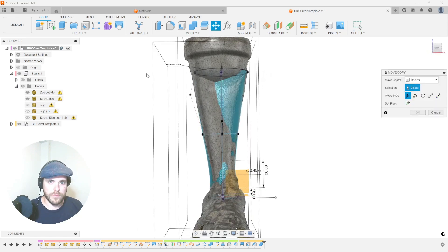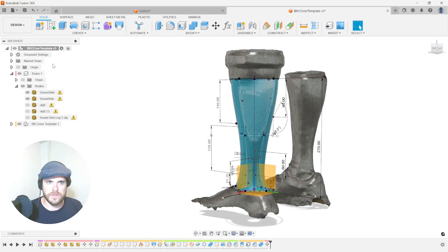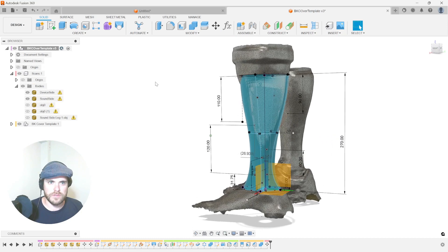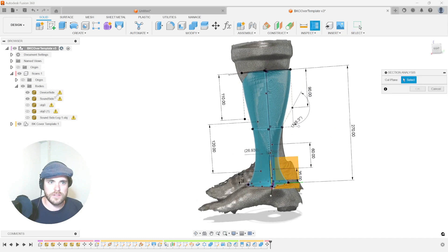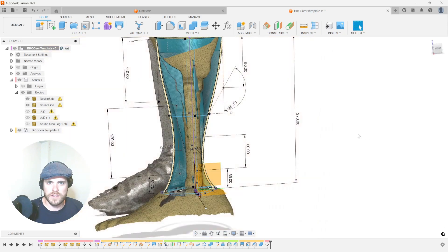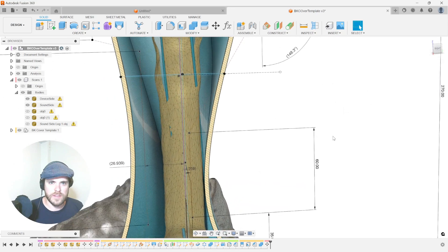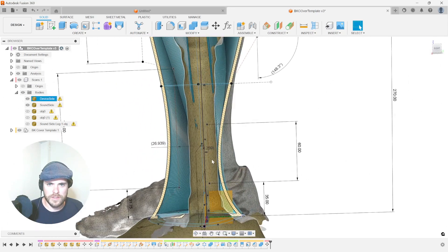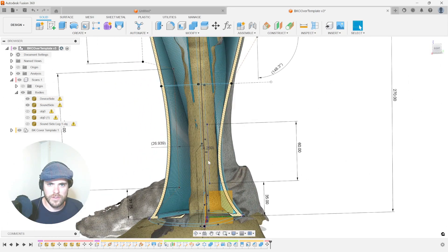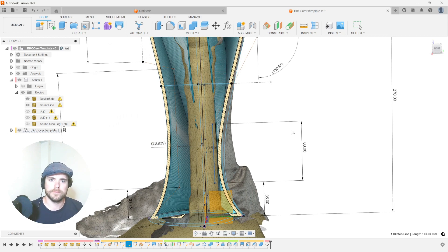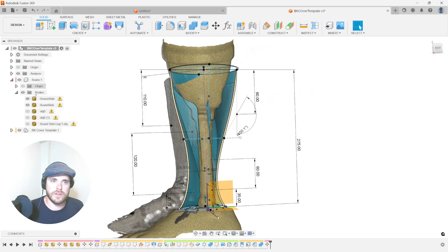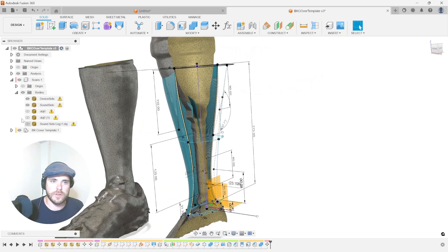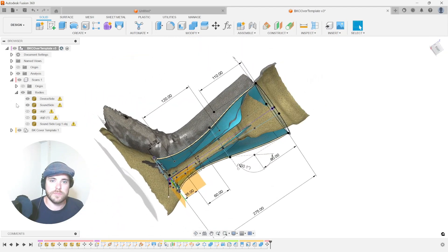We can move the sound side over if we want to, just to see the difference. And of course, we can also do a section analysis of this device to see how this will fit. If we need to make any further adjustments, we can. This might be a little close to that pylon. Let's bring that out. So with that, we are now ready to export. And it's that simple.